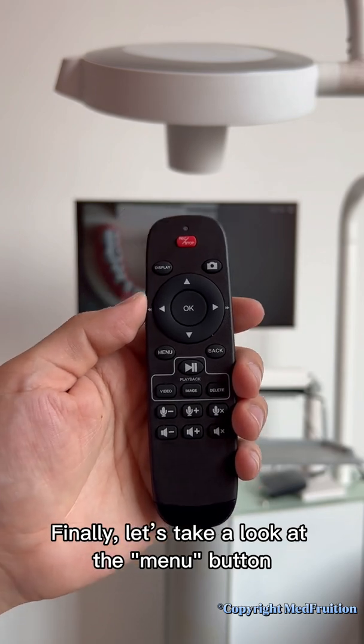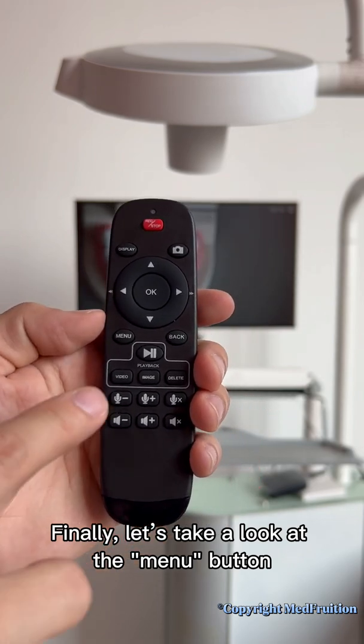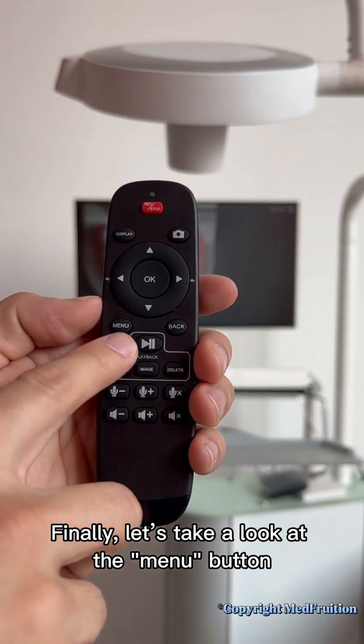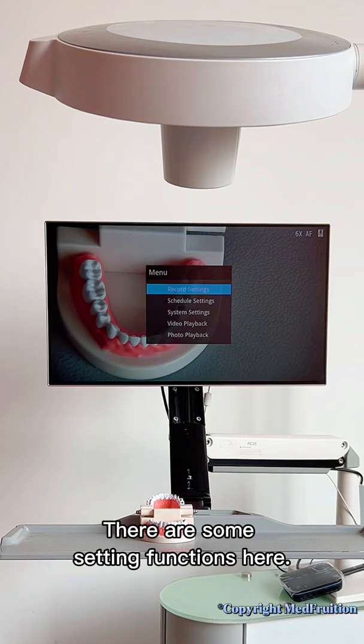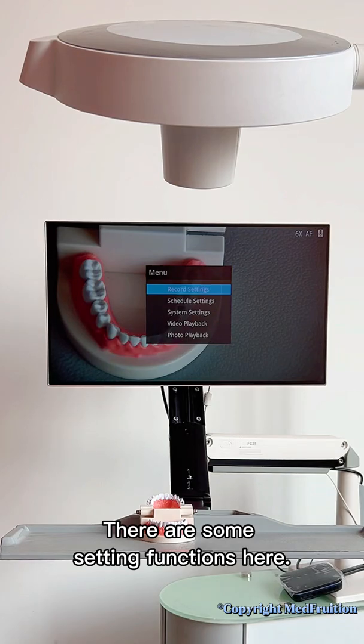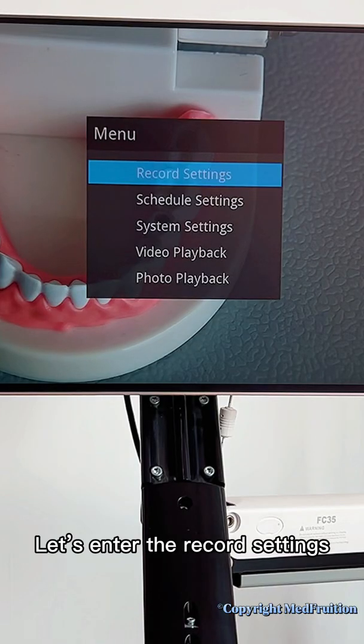Finally, let's take a look at the menu button. There are some setting functions here. Let's enter the record settings.